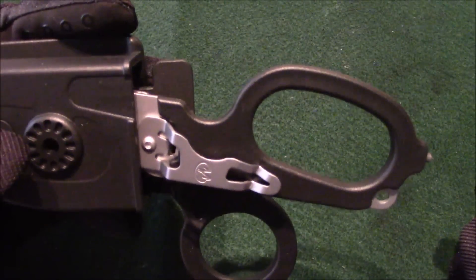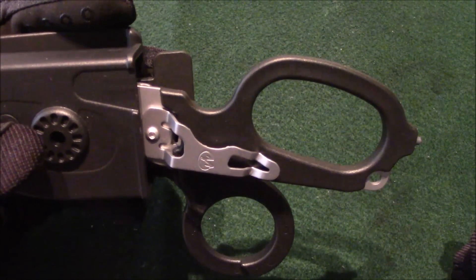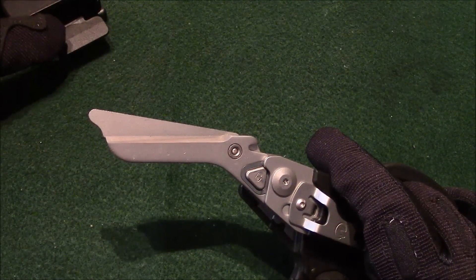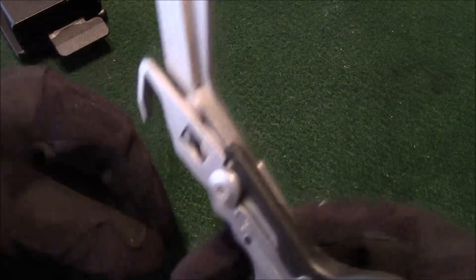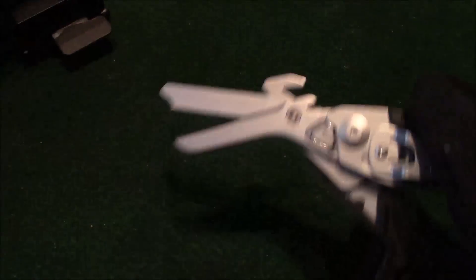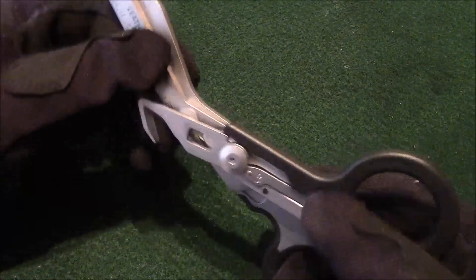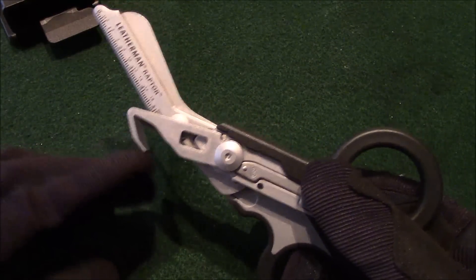This is an awesome piece of equipment for any EMT, any nurse, or any doctor, especially if you work in the ER. How many times have you gone to get some oxygen and you can't find the oxygen wrench anywhere? Not a problem — all you have to do is flip this out and you've got an oxygen wrench right there. If you need to cut a patient's jeans off, just snip it, get the strap cutter at your cut, and rip it down. It's really sharp, and this end is rounded and smooth so you can follow the cut without hurting the patient.